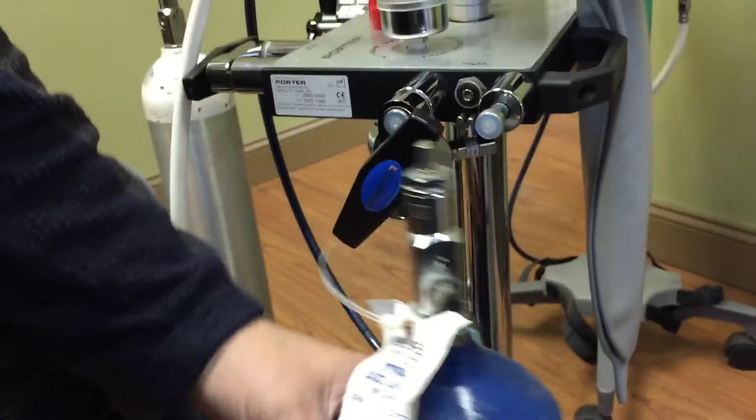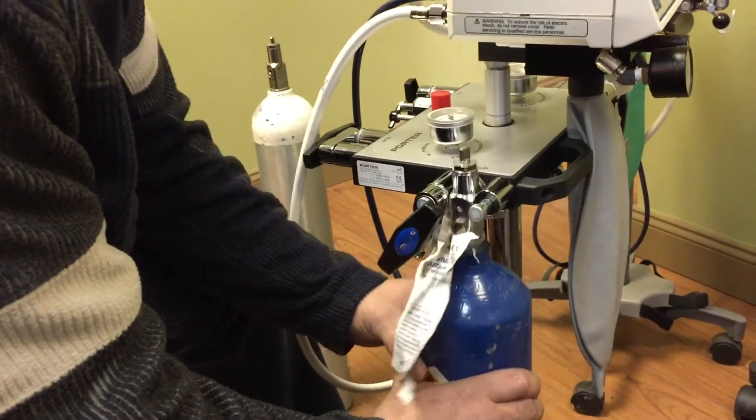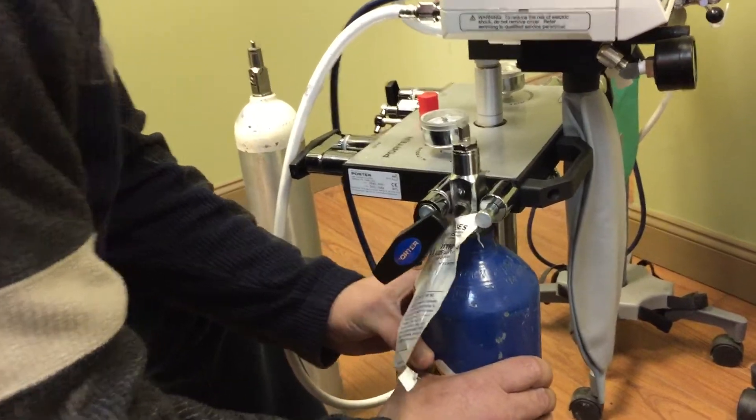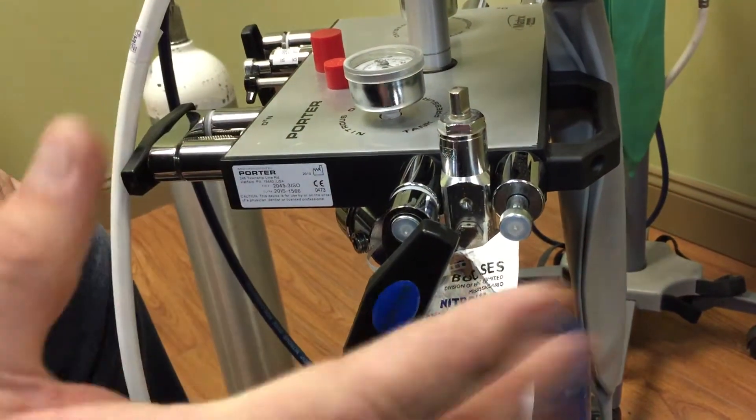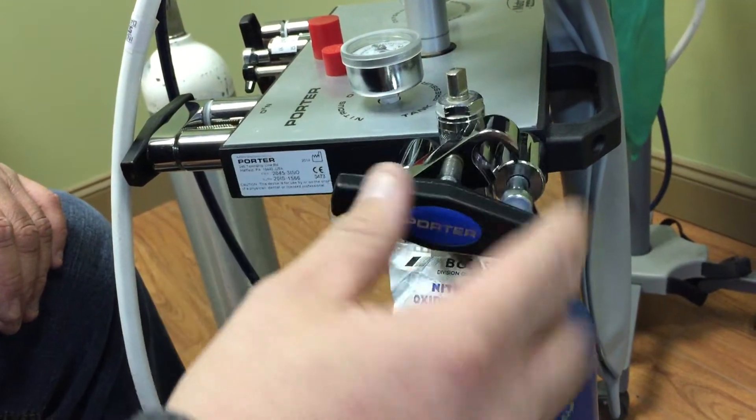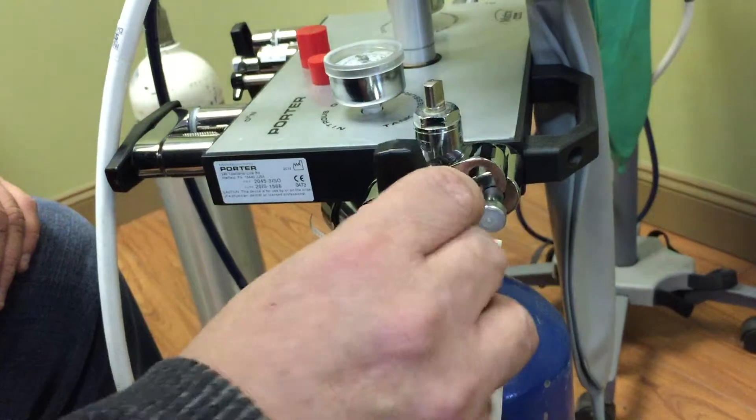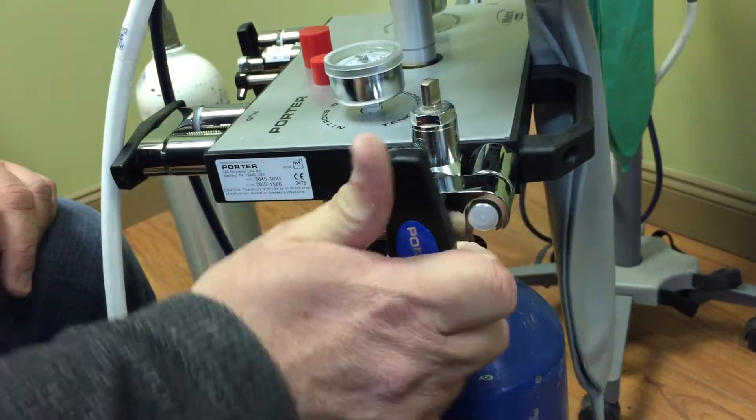And then your nitrous oxide, you would just lift this thing up and rest it on those two pins. And you'll see it'll just slide right in there. Boom. Once it slides in there, it actually holds itself up there. And then you just turn this thing over to the top and tighten that thing down nice and snug. Like so. That tank's installed.